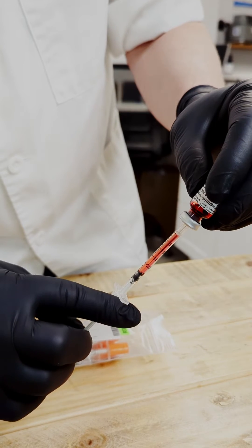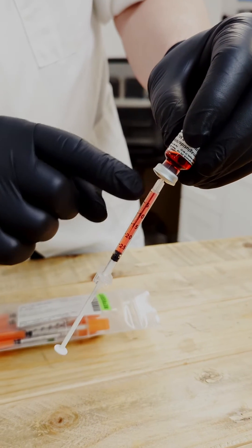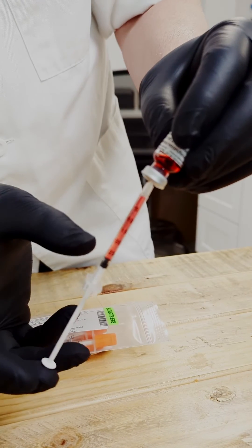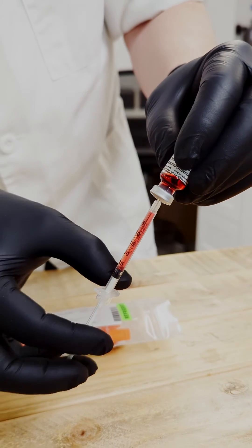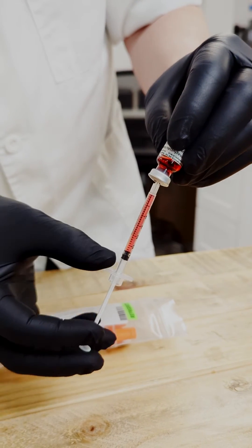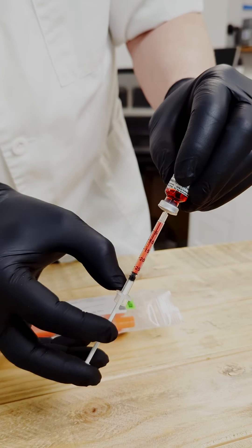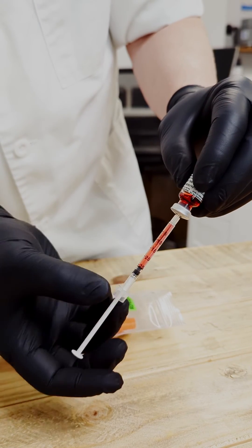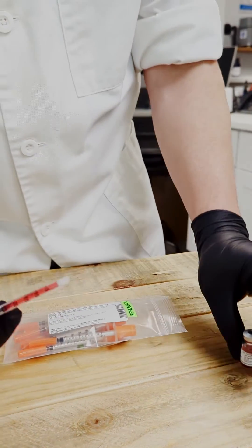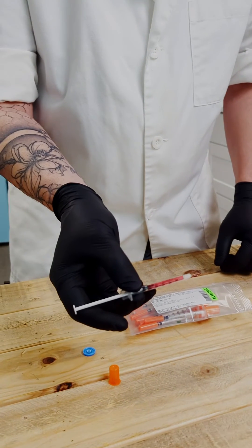Now at this we can also go past because air bubbles will form at the top sometimes, especially when you get closer to the end of your dose. Then all we want to do is push that back up to our dose, pull that out, and then this syringe is ready to inject.